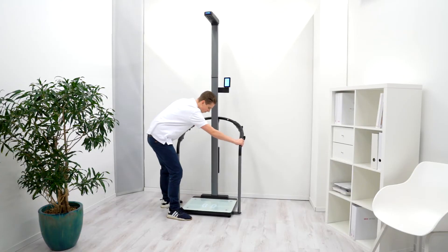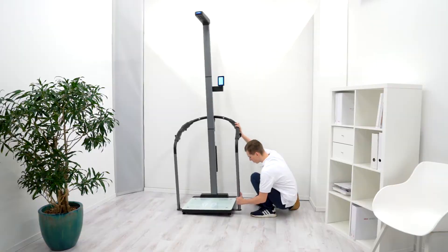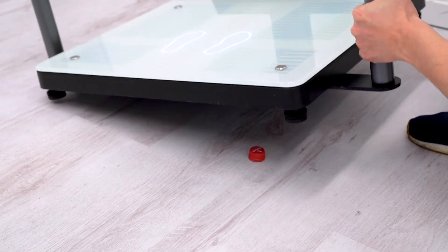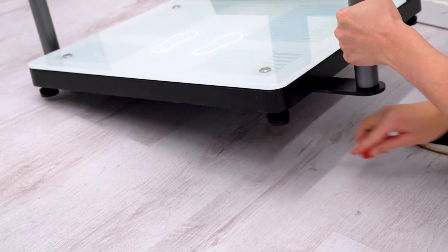Please make sure that the device is straight, does not wobble, and that the weighing platform is not resting on foreign objects.